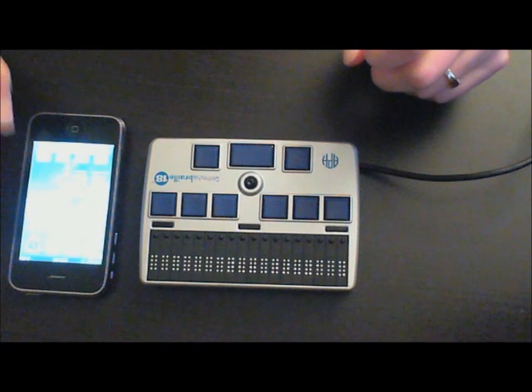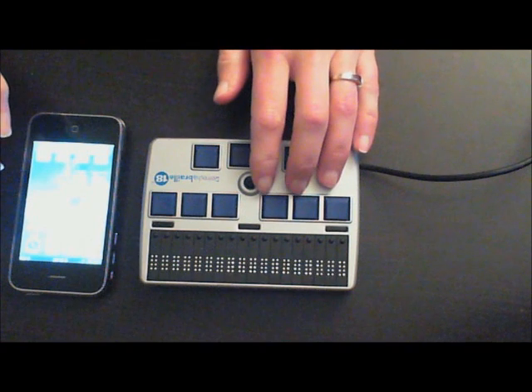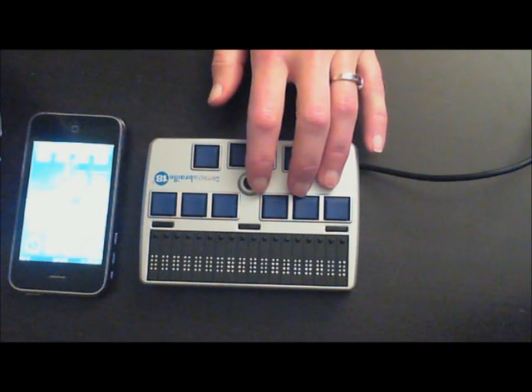What works on the iPhone also works on the iPad and the iTouch. I'm going to go to my joystick on the Refresher Braille and move the joystick to the right just to move around my display.